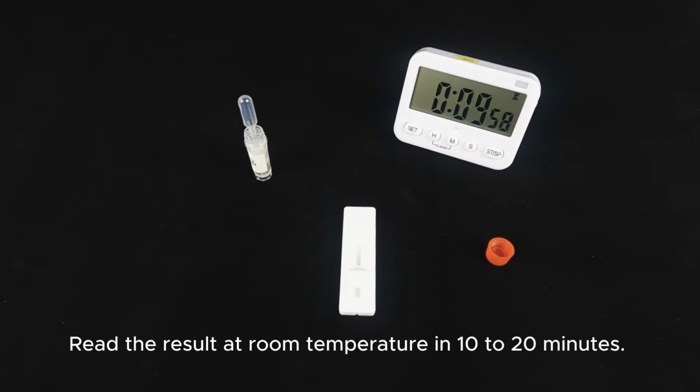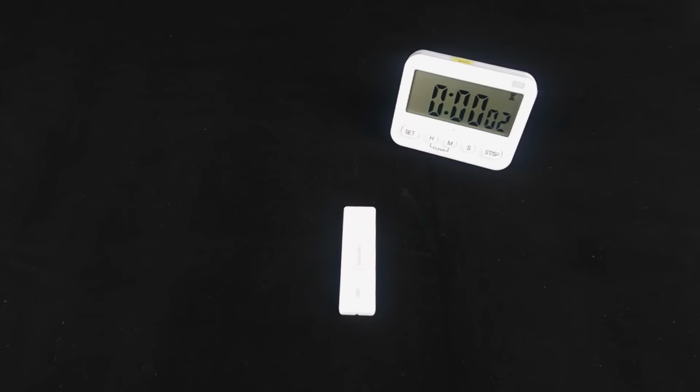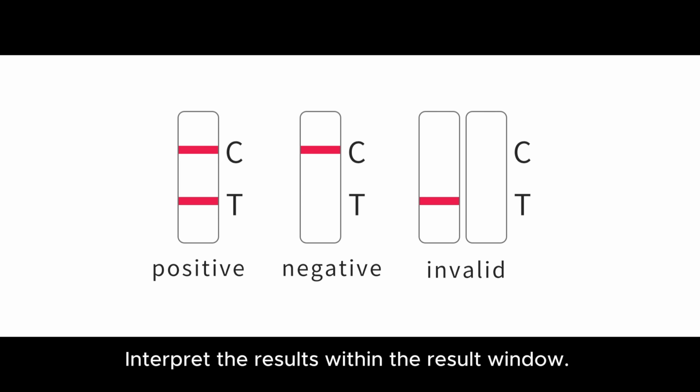Read the result at room temperature in 10 to 20 minutes. Results are invalid after more than 30 minutes. Interpret the results within the result window.